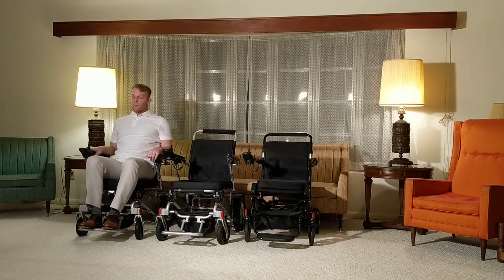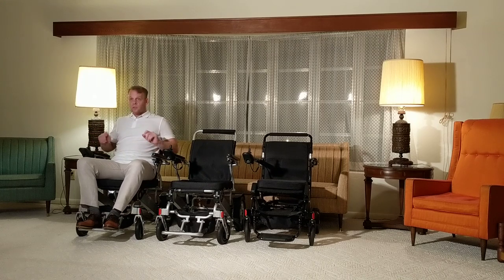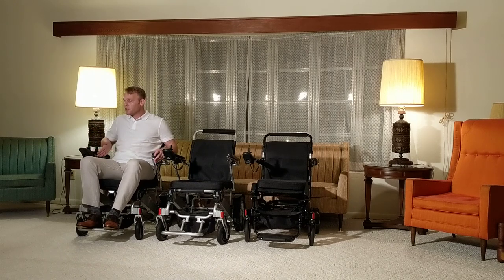This particular Electra 7 special order, with a price tag of $3,247, has 21 inches of space between the armrests and holds up to 400 pounds. It's a very comfortable chair. We'll be taking an in-depth look at some of its features, including the Electra 7 heavy duty wide version, which is becoming very popular because nobody else offers a heavy duty chair with this much space between the armrests and the unique features it has.